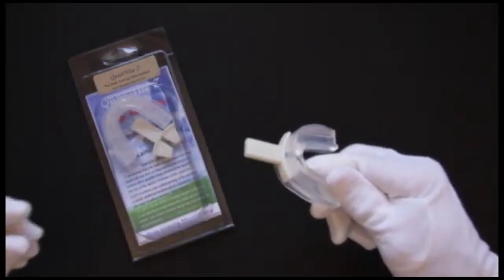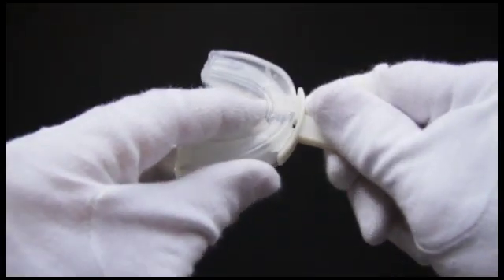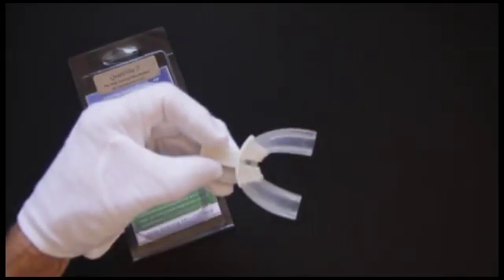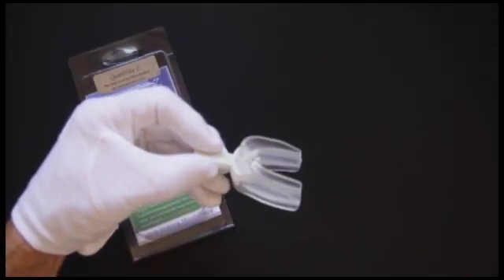Then the mouthpiece is heated in hot water, placed into the mouth, and molded around the teeth. While the mouthpiece is still warm, the jaw is moved forward to open the airway and held in this position until the mouthpiece cools.